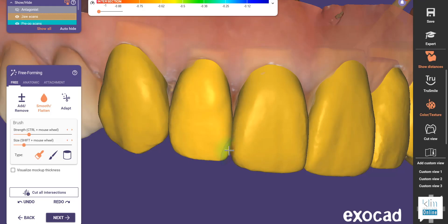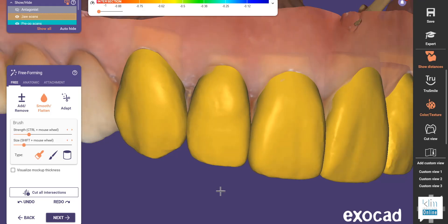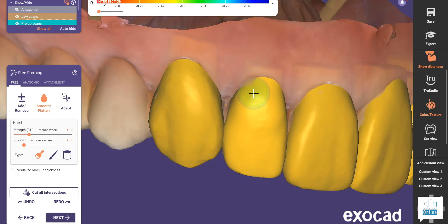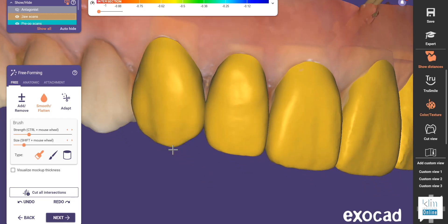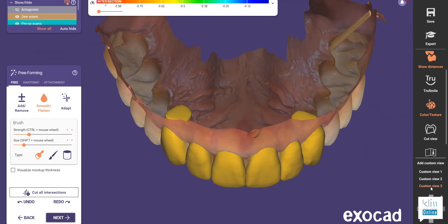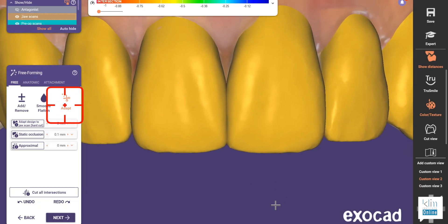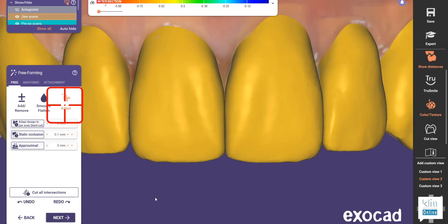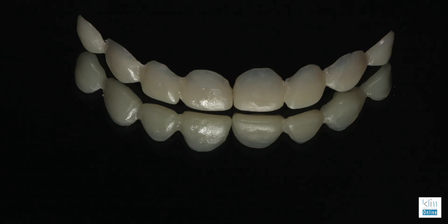With smoothing, there's another feature I use — with the Shift key, you can flatten smooth, which is fairly aggressive. But at this stage, I just need a really subtle detailing smooth, which is clicking at around 35%, where I want to slightly smooth line angles and emergence. Then we can add with the click as well. The final tool in the freeform detailing is the adapt tool. You can adapt the proximal, you can adapt the occlusion, and you can adapt so it fits onto your model — so you can make these shell-type smile makeovers, which works really well.